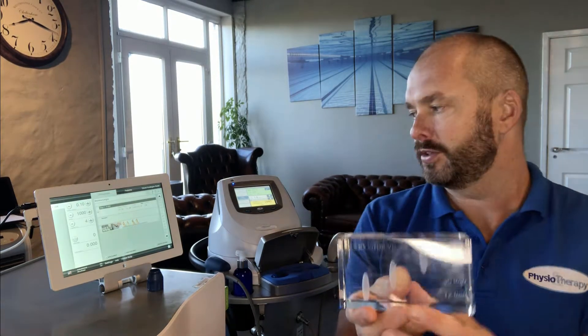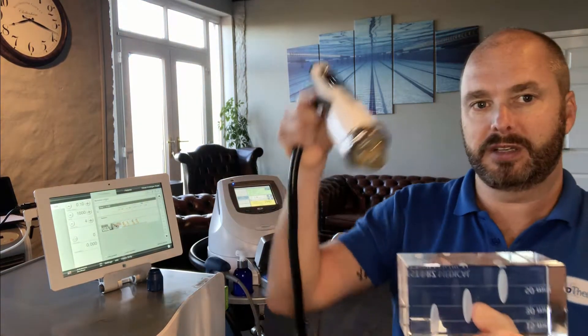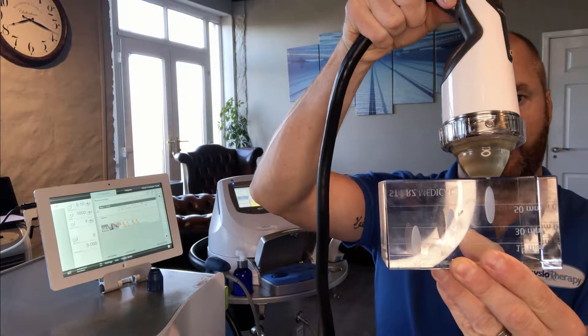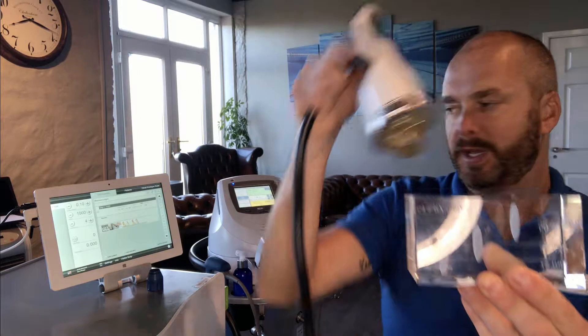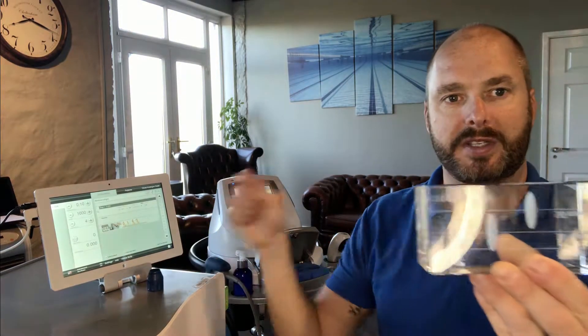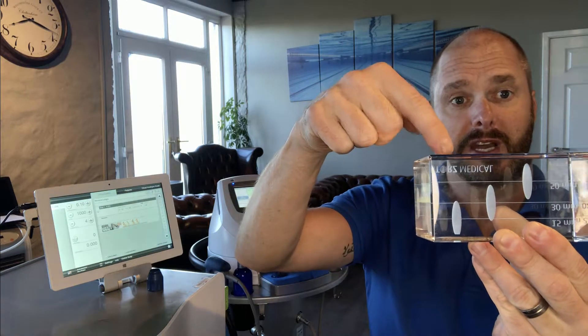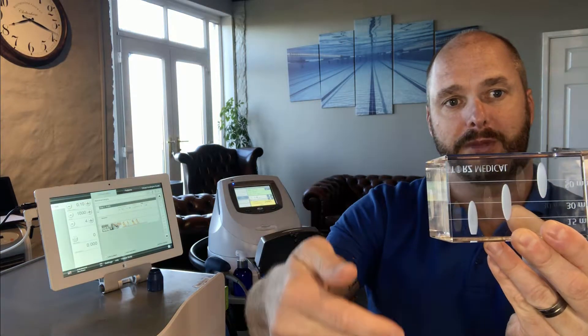We've got this nice glass block here, so if I were to be using this standoff you can see where the treatment will be. If I were to use a smaller standoff, the treatment would be in this range, and without a standoff the treatment depth is much greater. So we've got a much more pinpoint opportunity for targeting the treatment area.